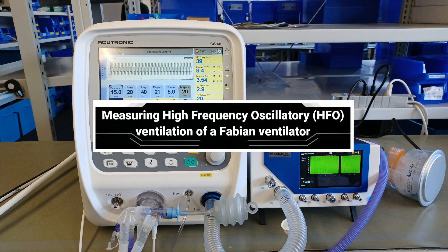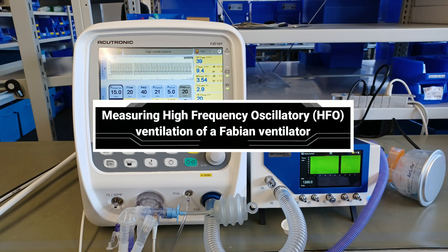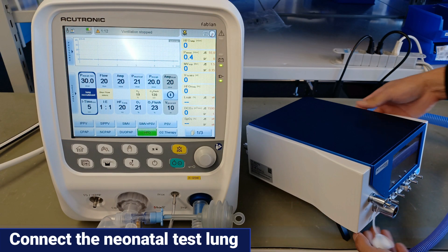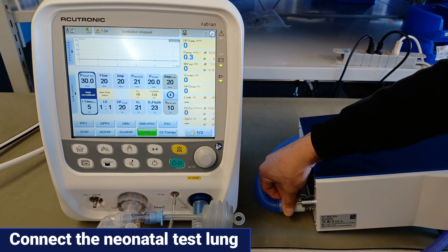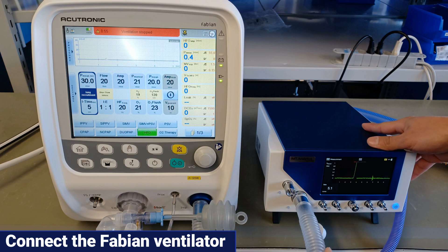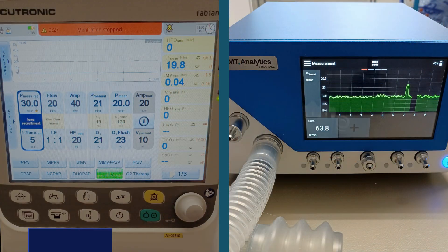Measuring High-Frequency Oscillatory Ventilation of a Fabian Ventilator. Connect the neonatal test lung. Connect the Fabian Ventilator. Start ventilation.